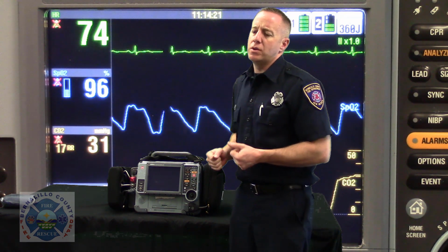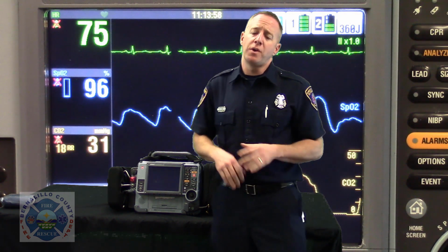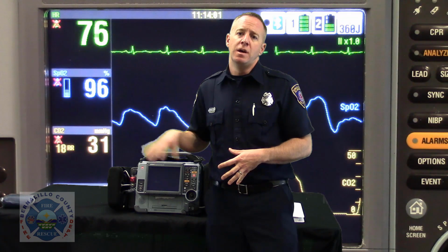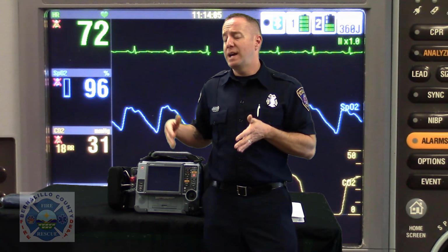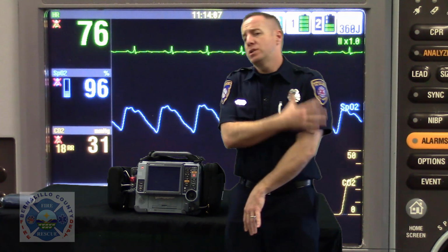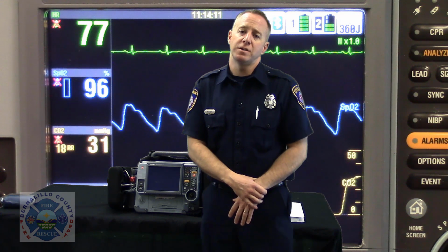Almost every single North American ambulance, and even in Europe, the patient is loaded on a gurney with their right side to the cabinets, and their gurney will be loaded with the gurney towards the patient's right side. This continually leaves the patient's left side available for serial blood pressure monitoring and serial vital signs.